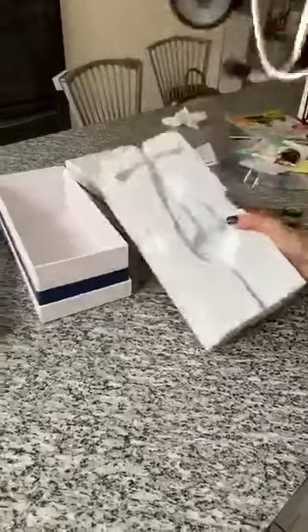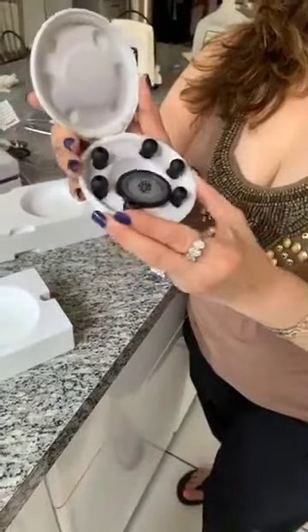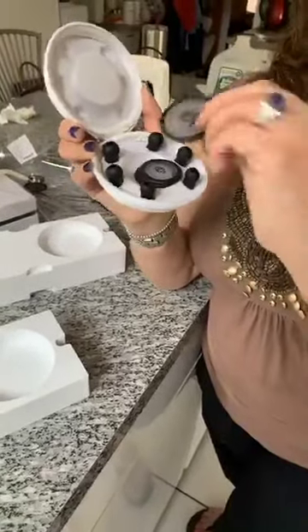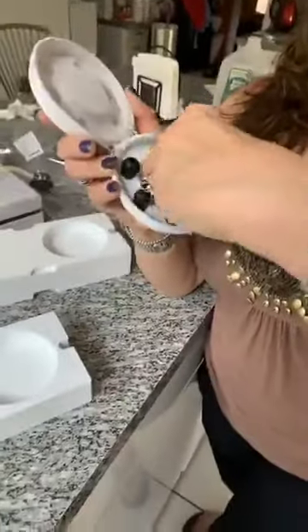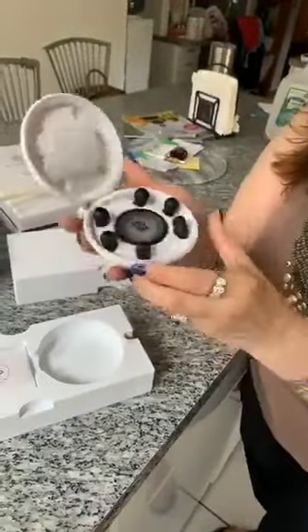Let's see. It's long enough, as she said. It's beautiful. I'm smelling it — it is not latex, it's not rubber. Look how pretty that is. It comes with three separate earpieces, which come in the case: small, medium, and large. It comes with different bells. You can make the pediatric bell into a different diameter. There's an extra rubber bell here, which is latex-free.